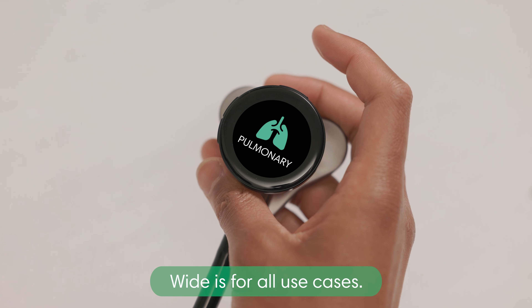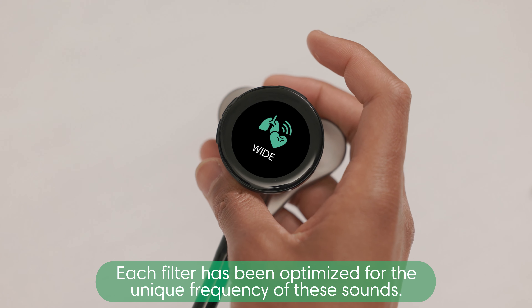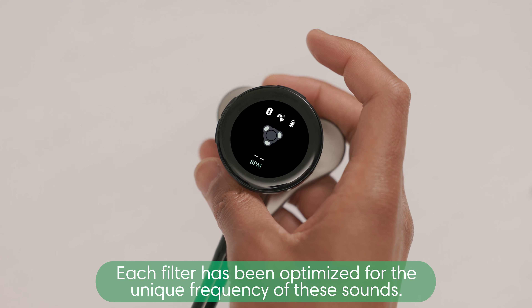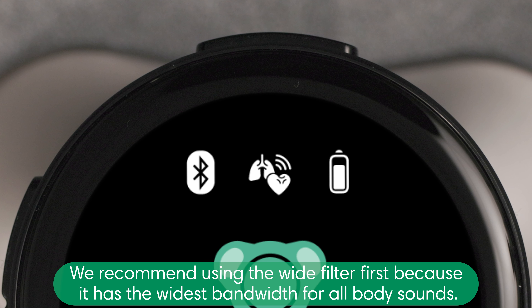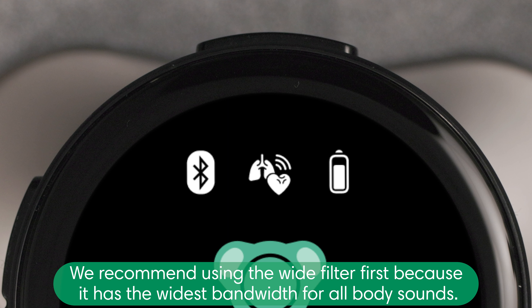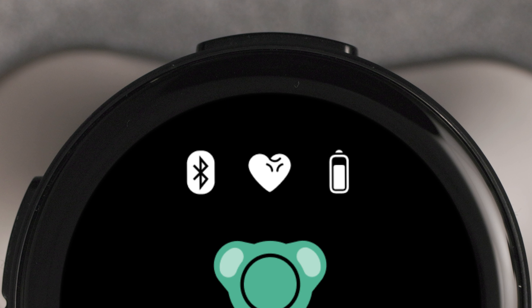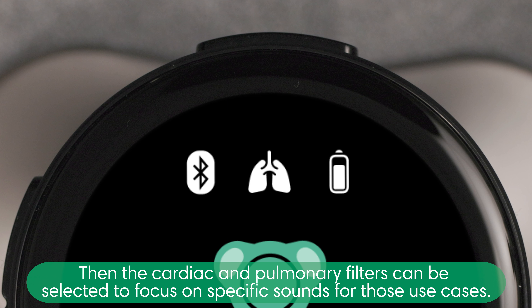Wide is for all use cases. Each filter has been optimized for the unique frequency of these sounds. We recommend using the wide filter first because it has the widest bandwidth for all body sounds. Then, the cardiac and pulmonary filters can be selected to focus on specific sounds for those use cases.